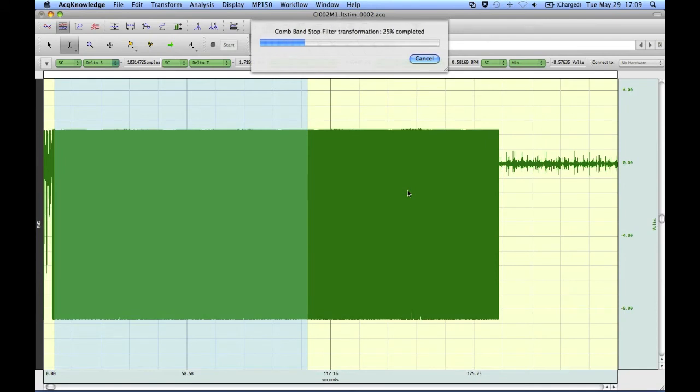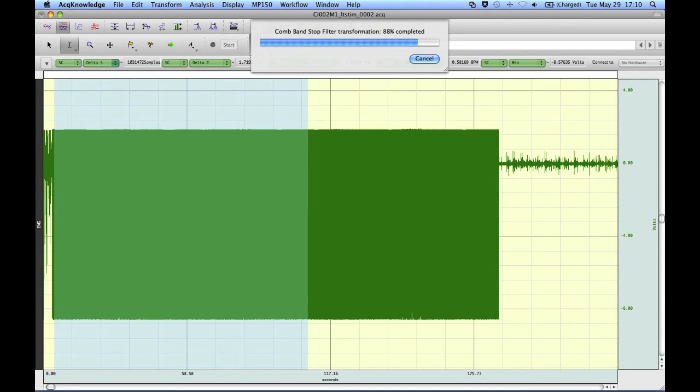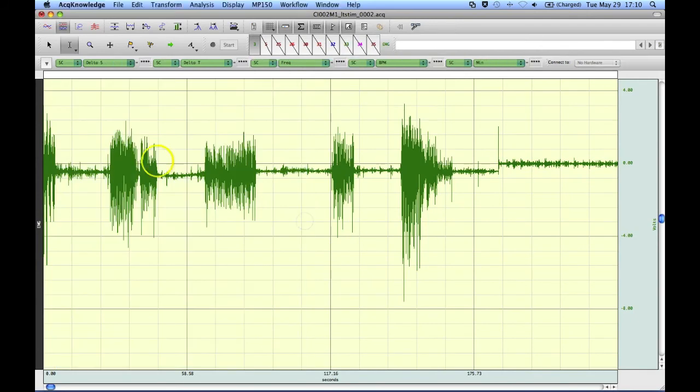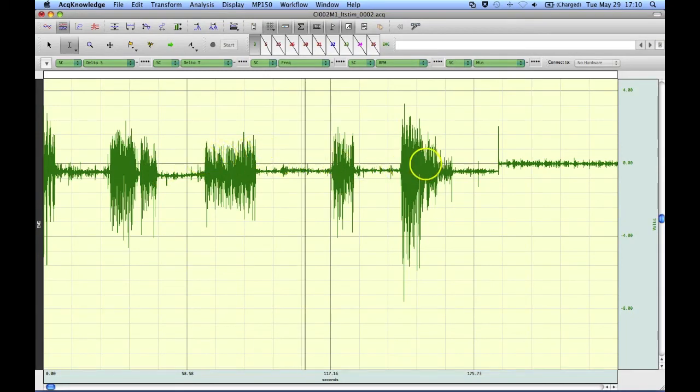This will transform the data over here, but it shouldn't do any harm. It will eliminate, hopefully, most of the noise while the MRI was in operation. So now we can see where our subject was. I'm not sure what they were doing, clenching their arm. And we can see these bursts of EMG data.